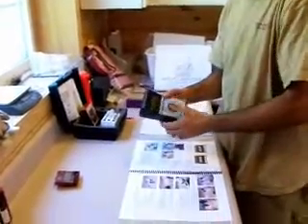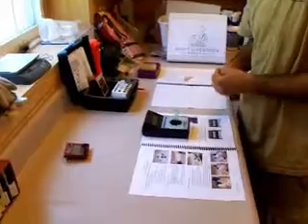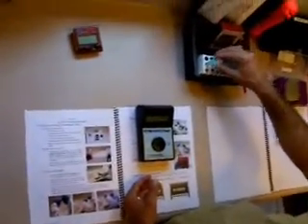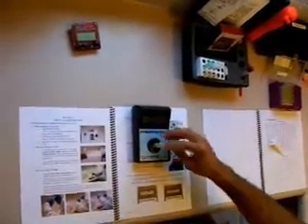Turn your DVM rapid test on — really the machine is going to tell you what to do now. It comes on, shows the model number, and says 'insert blank.' Put your blank tube in and it reads that tube. It says 'reading blank' then 'remove blank,' so remove it. Take your reagent tube that you just processed and put that tube in, gently wiping the outside as fingerprints can sometimes skew the results.